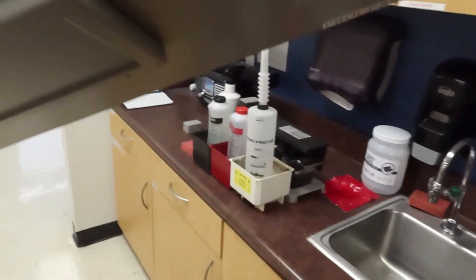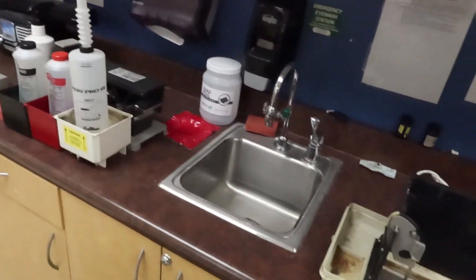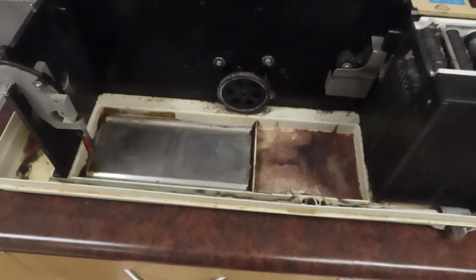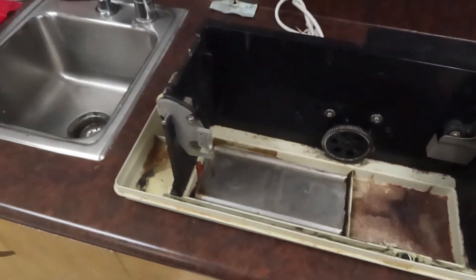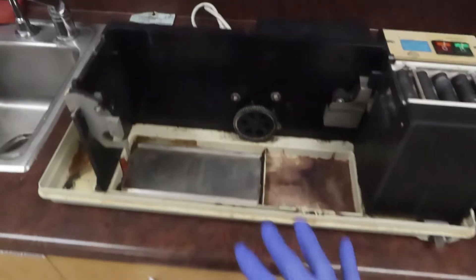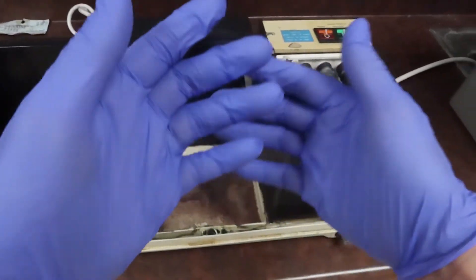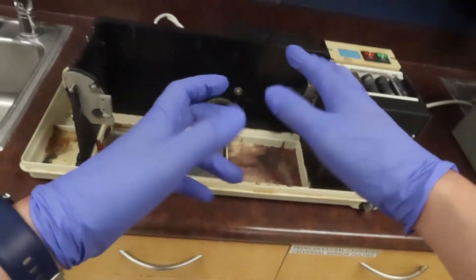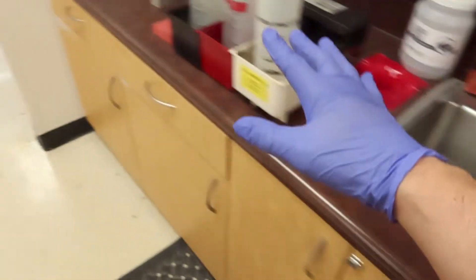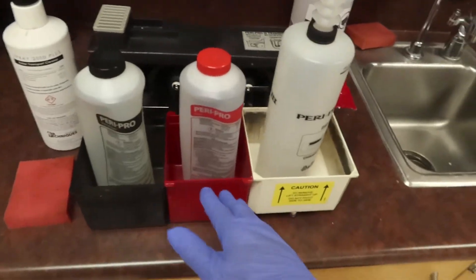Oh, there it is. I just already disassembled it, so this is where a lot of our basins will go into there. We're gonna have these little areas and gears that are going to need to be cleaned and maintained so that this doesn't break down on us.